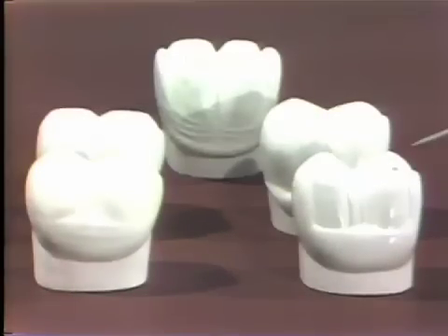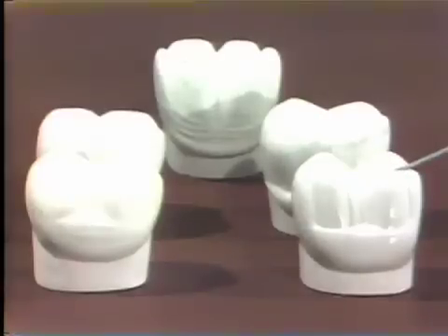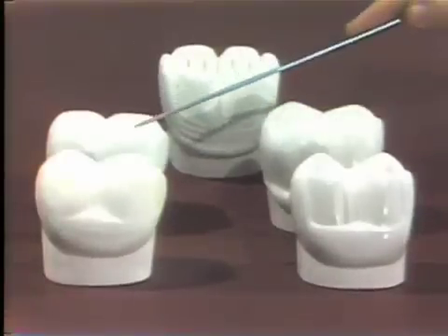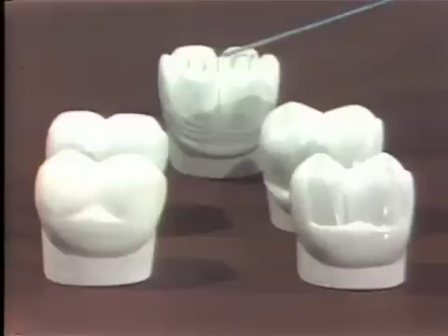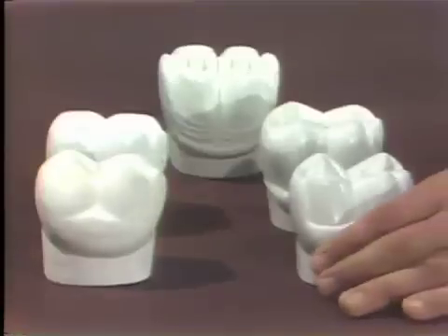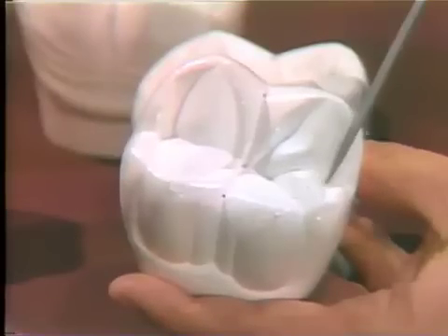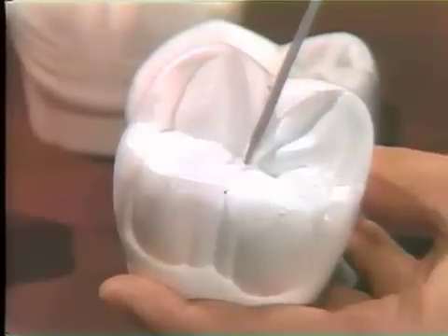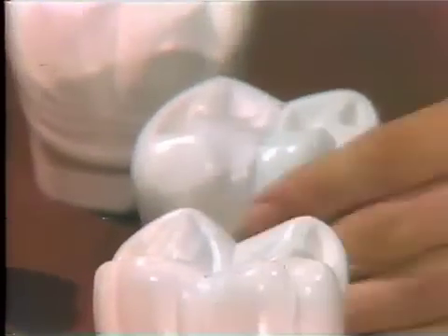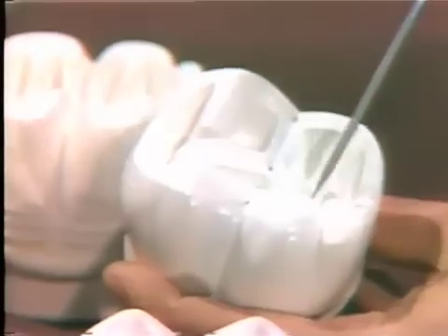We see before us five different posterior teeth from one manufacturer representing different occlusal morphologies. The two teeth in the front represent anatomical teeth, followed by two which represent non-anatomic teeth, and a third which represents the flat plane or zero-degree rational posterior tooth. The non-anatomic tooth has a specific design to its occlusal surface based on mechanical principles and geometrical design, with only slight attention paid to anatomical form compared to a natural tooth.